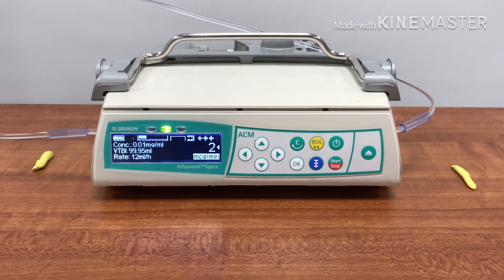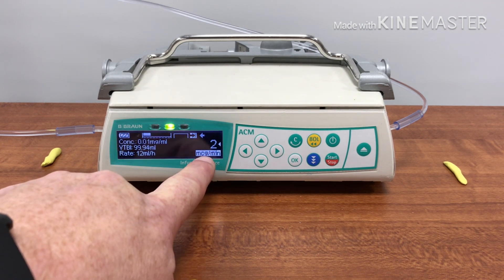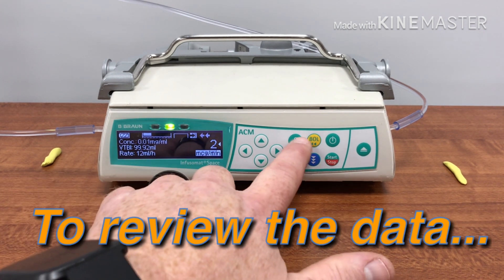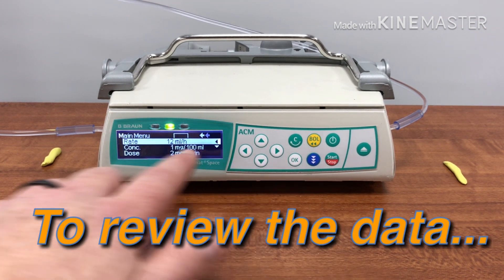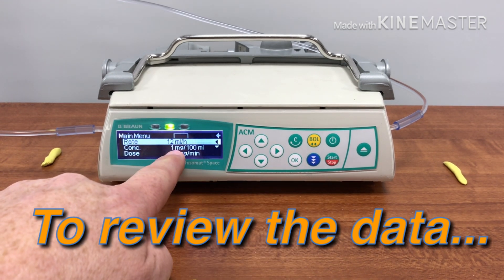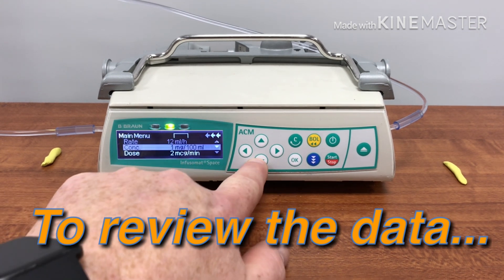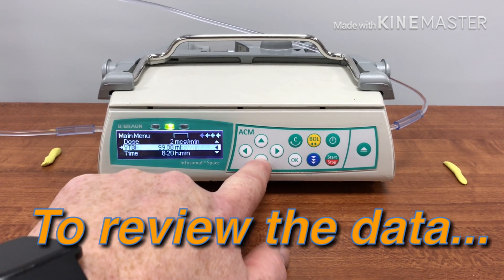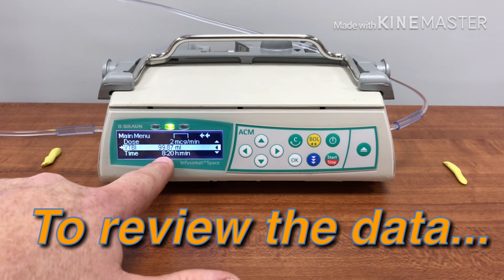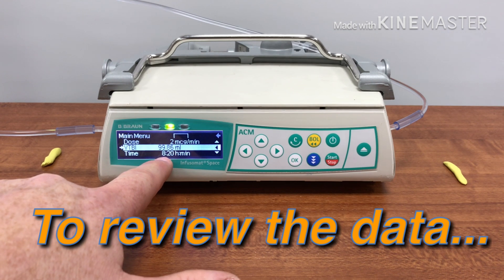At this point it's going to infuse at the programmed dosing of two micrograms per minute. If you want to know other data about what's going on, this is your rate. If you just hit back, it'll take you to your rate, redo concentration, show you your dose again, and also tell you how much volume you have remaining.